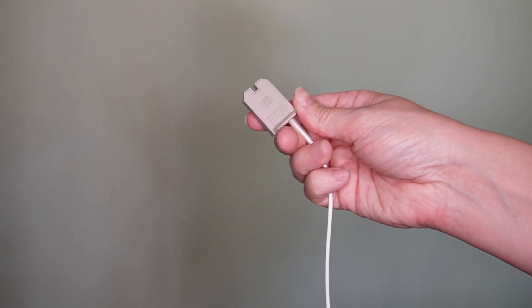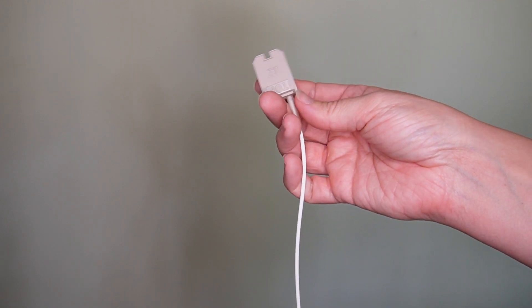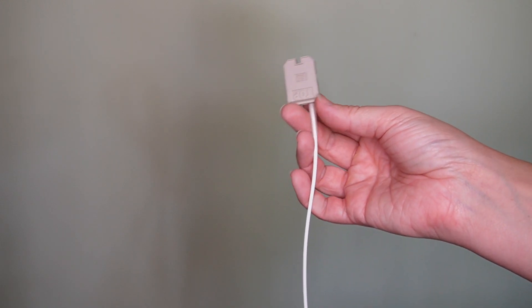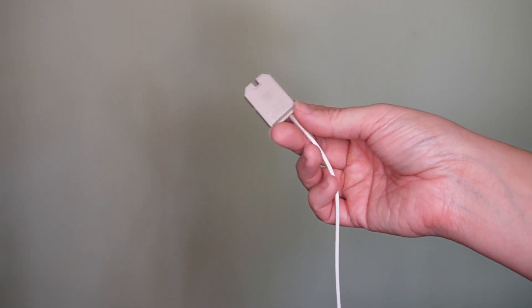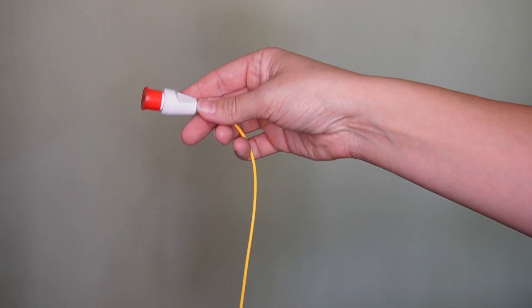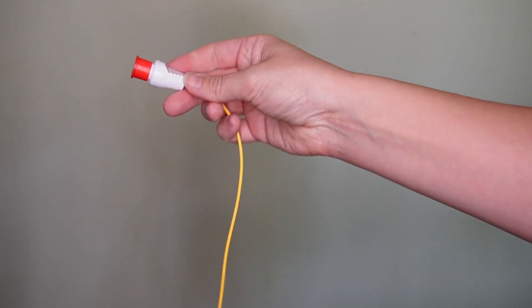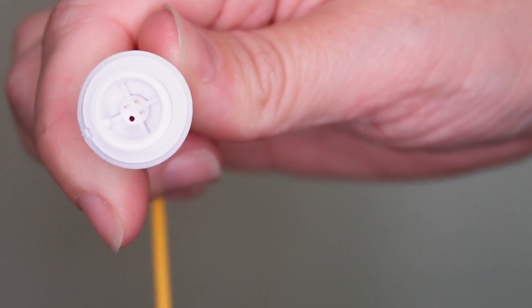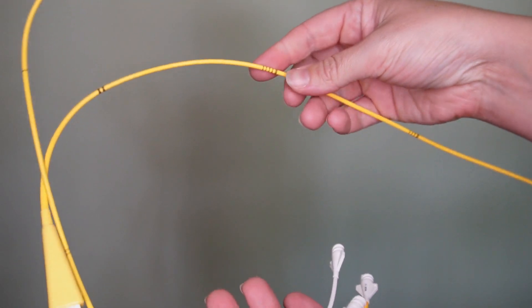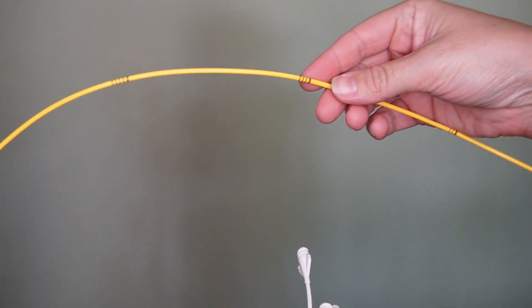Speaking of SVO2, some PA catheters have an oximeter connector, which allows for continuous monitoring of SVO2 levels when connected to your monitoring system. There is also the thermistor connector, which connects to your bedside monitor as well — it allows for the measurement of core temperature and is used when obtaining manual cardiac output measurements.